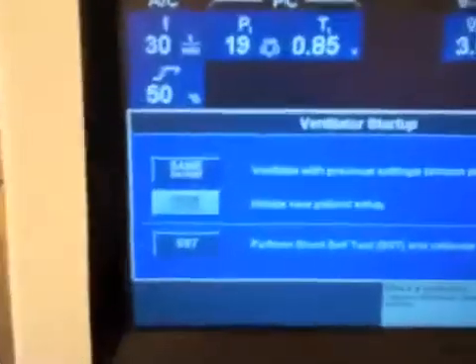What we're going to do today is we're going to go down to this SST, which stands for short self-test, and we're going to calibrate our circuit. So you can push this, and you've got to go down to the side and push this test button. It will time out on you, so make sure you do that relatively quickly.